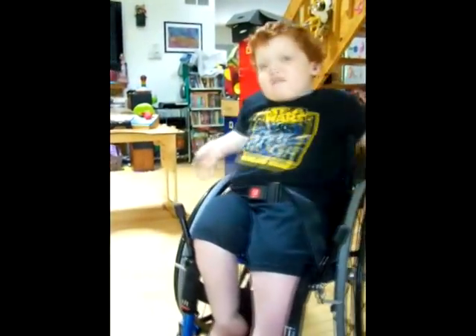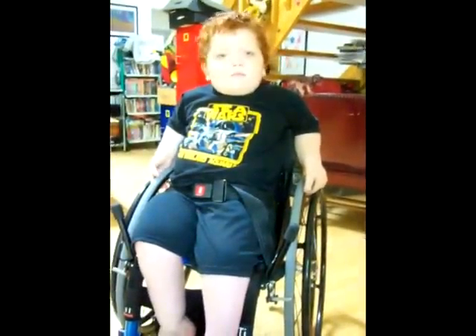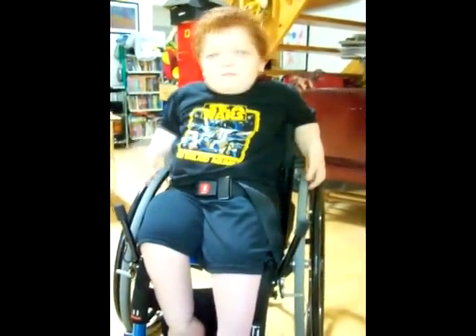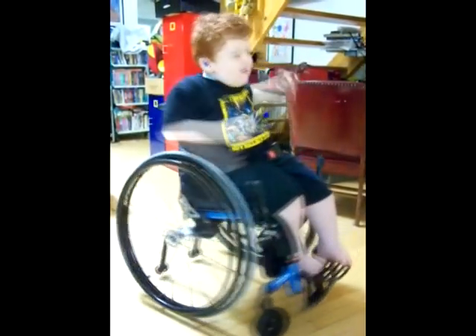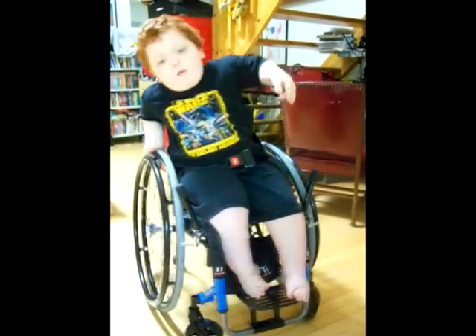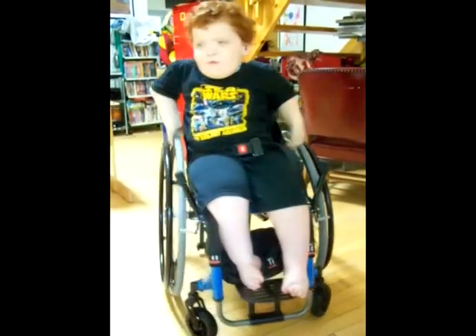I have no idea why it's easier without my shoulder brace. Well, because you just have a little bit more mobility without it — you can lean over a little bit more. Can you turn in the other direction please? So you're using elbow power? Yeah, it's the only way. I'm going straight because I can't get enough force to push back, and even when I do it would take me an hour to go in a full circle.